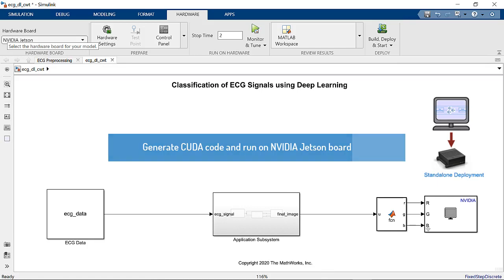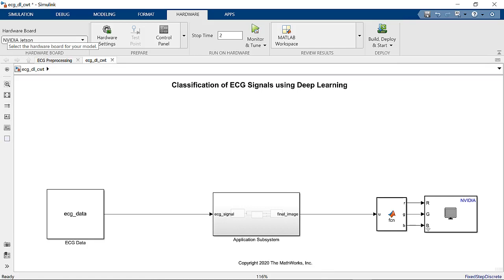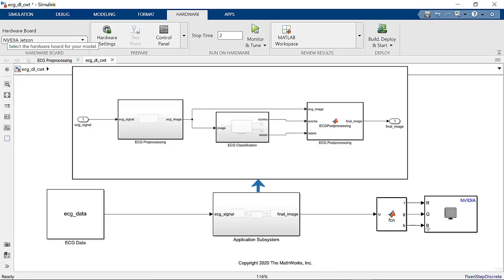When generating code, we can set GPU Coder to use NVIDIA's Optimization Libraries for the best performance. With Deep Learning Networks, both cuDNN and TensorRT are supported.